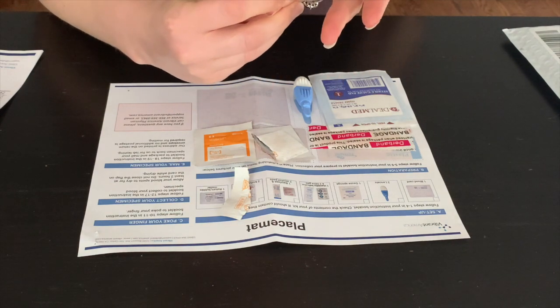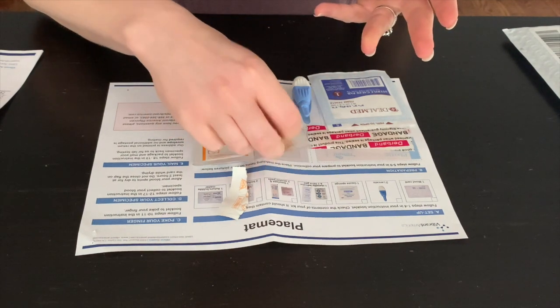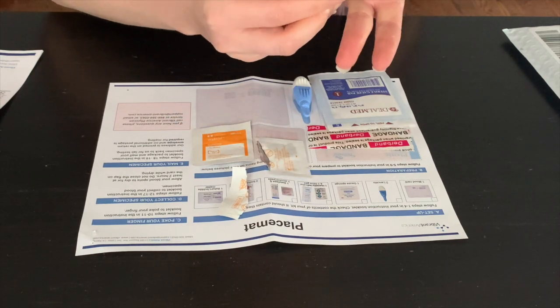Wipe your chosen finger with the alcohol wipe in one single wipe. Do not wipe back and forth multiple times with the alcohol wipe.